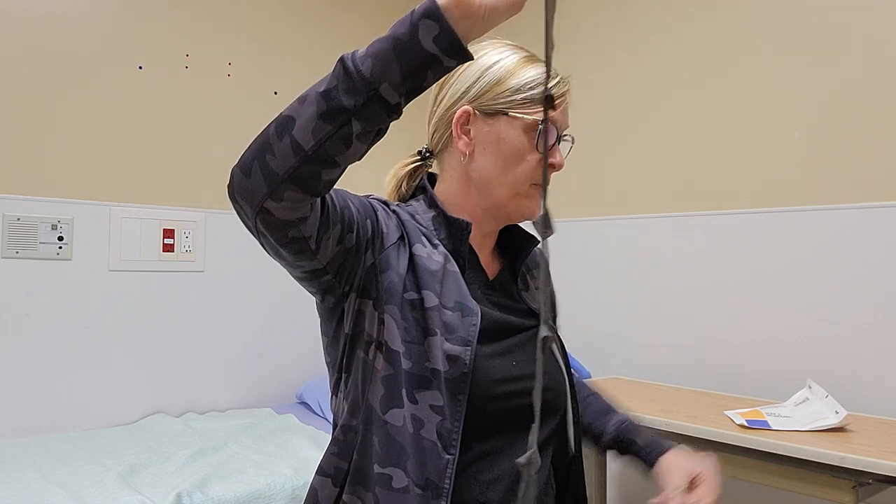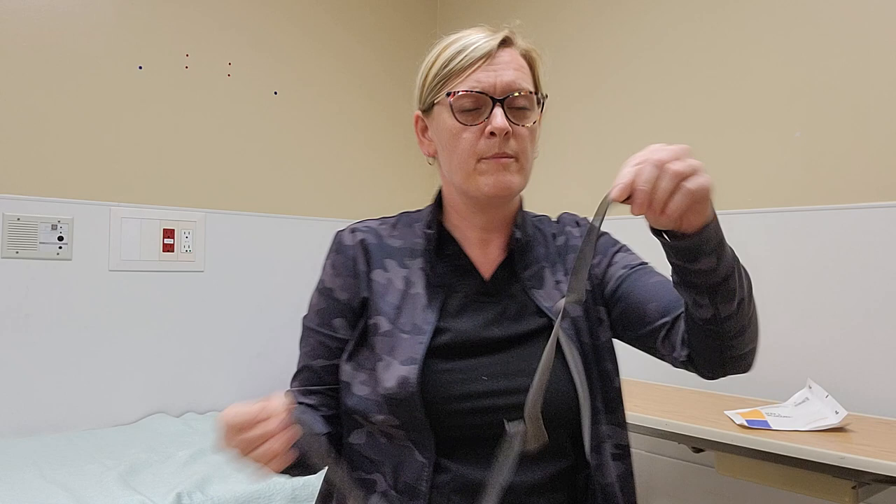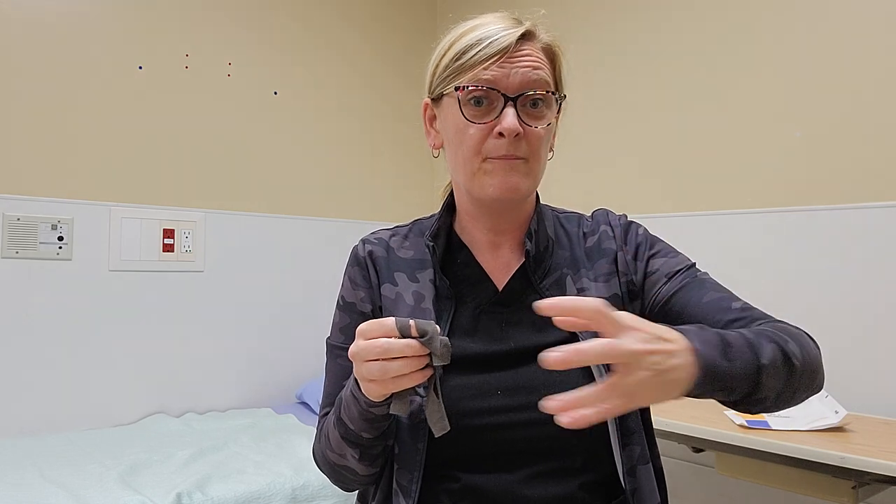You can actually use it under negative pressure because it's fenestrated. I also use this quite often for total contact casts because the antimicrobial in it is good for up to seven days. In the ActiCoat Flex 7, there is also a Flex 3 that's only for three days. But the Flex 7 works great under a cast because it controls odor and bio-burden, and it's just a really great versatile product for almost any type of wound.